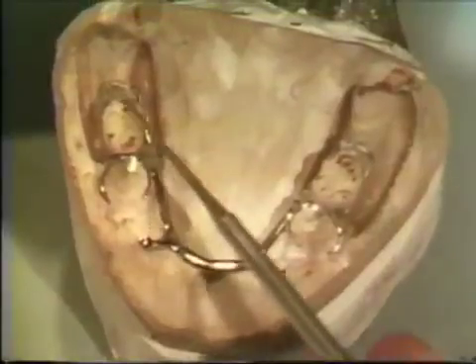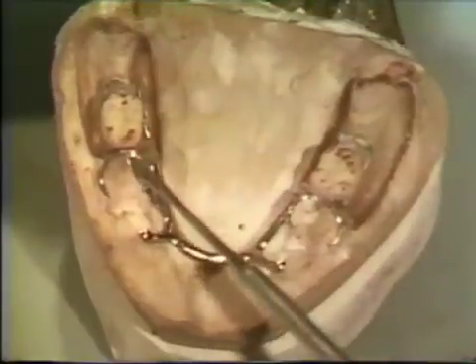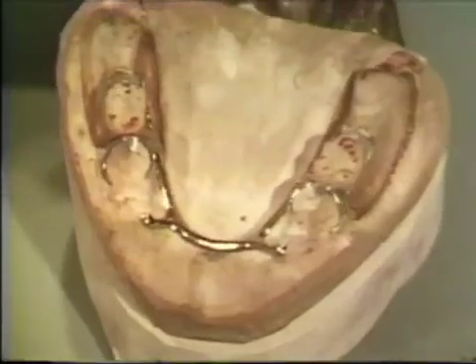In those instances where there is little inter-arch dimension, most of the original occlusal anatomy may be destroyed during the adjustment procedures. These surfaces should be reformed following processing of the base resin.